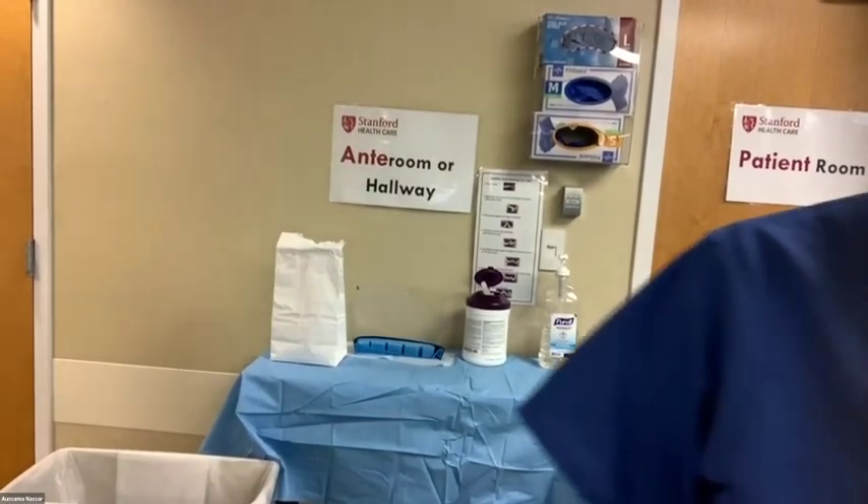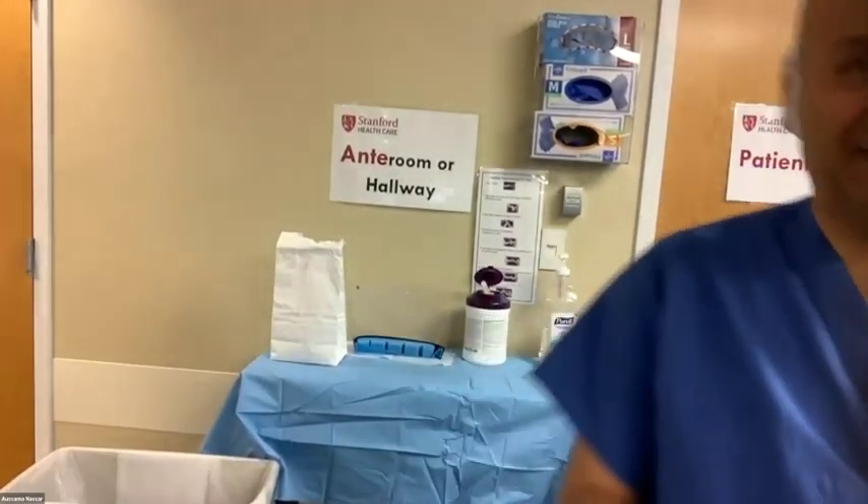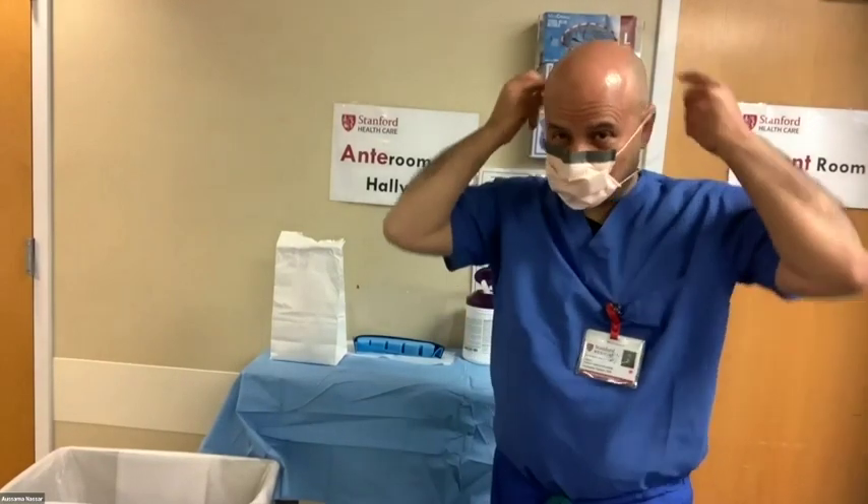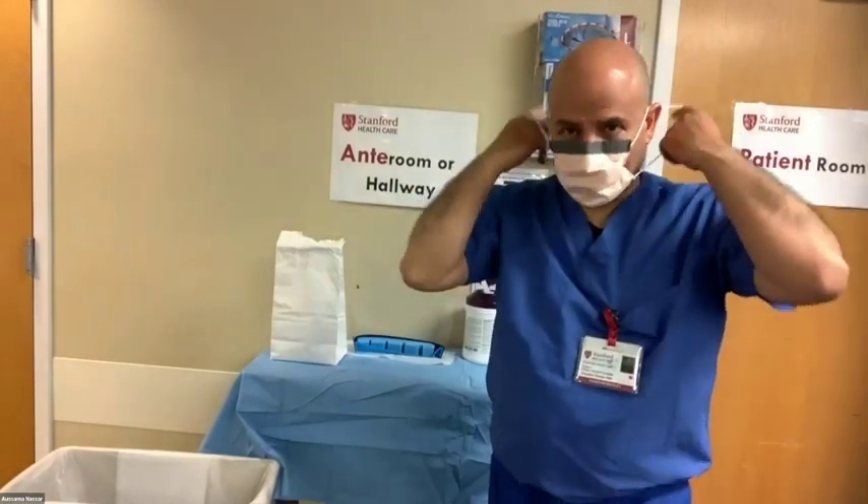If you had a procedure mask, you can fold it with the outside of the mask folded against itself, so that you're only exposing the clean parts. Sort of fold it inside out once you remove it, before placing it for storage.